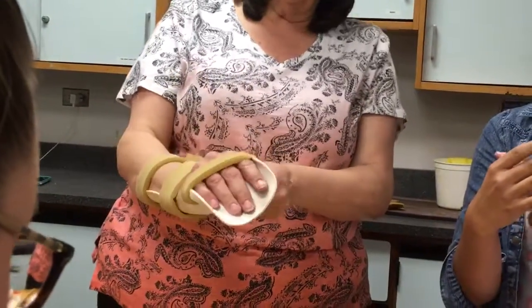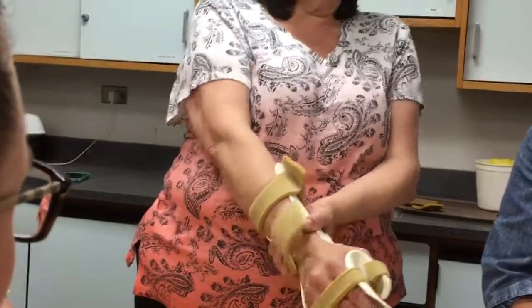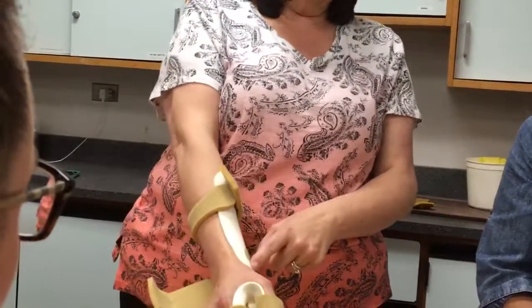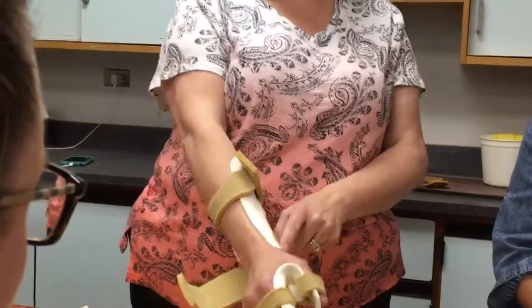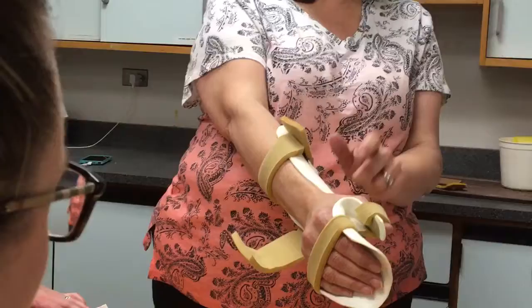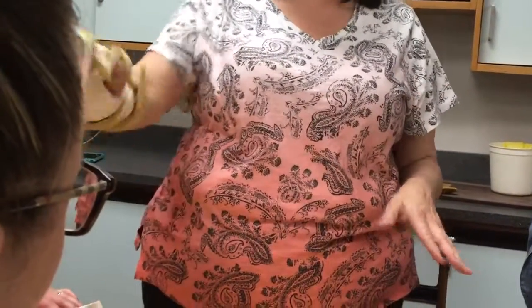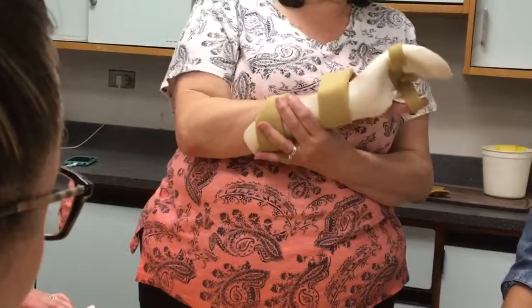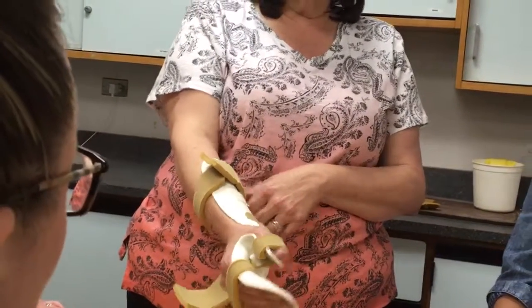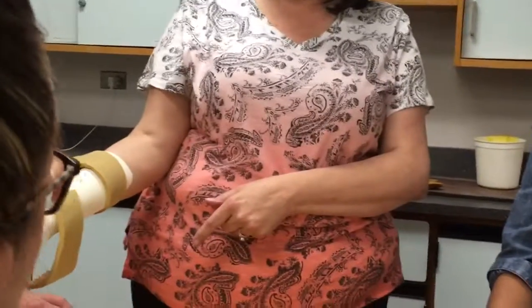The only thing I would tell you — if this was mine — big no-no. Look at that. Within 20 minutes that would be red. That's the kind of pressure points you're gonna look at when you see somebody with it on. Obviously none of these were made for me so they're not gonna fit me exactly right. My fingers fit well though, but here it's like wow, that's bad. See the arch? My hand is not fitting in that arch.